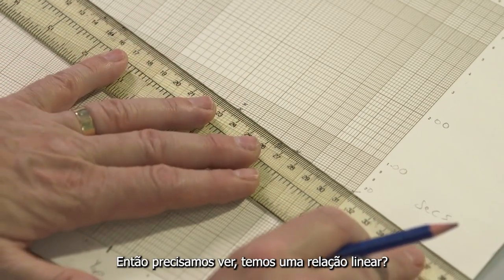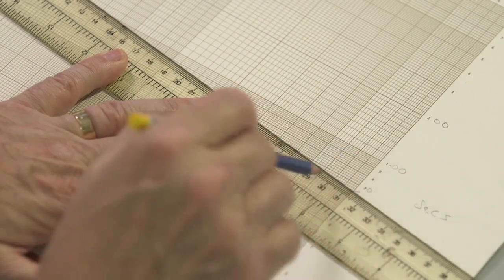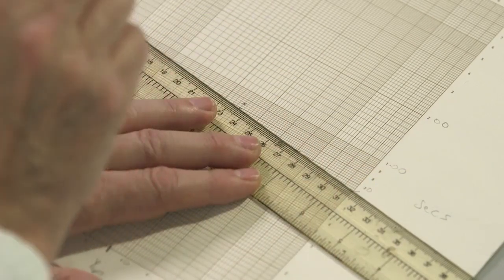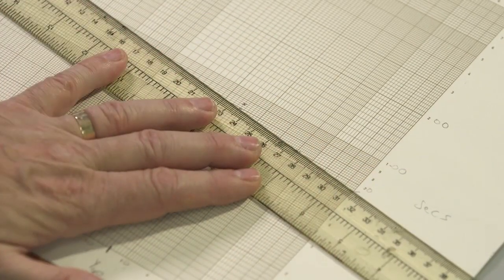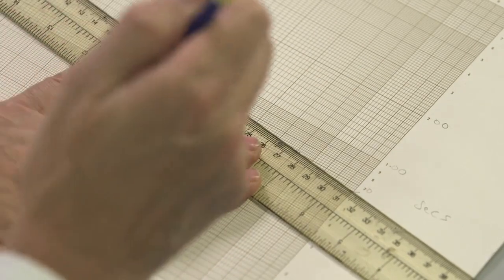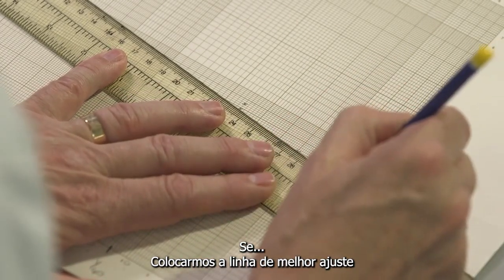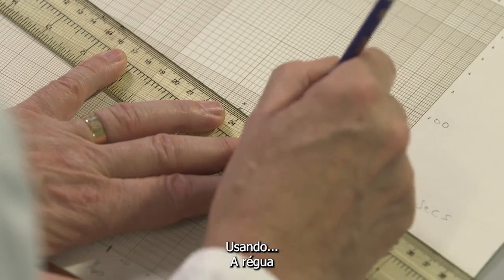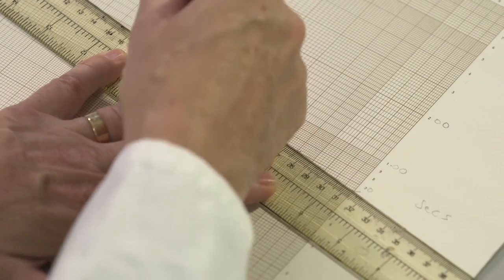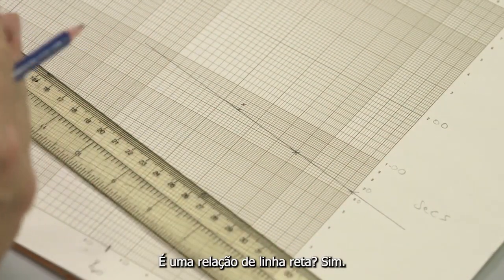So we need to see, do we have a straight line relationship? And it's immediately apparent that there is a very good straight line relationship, at least if we use the clotting time of 78.5 and ignore the 85. It seems as though this is an outlier. If we put the line of best fit using the ruler through those points, is it a straight line relationship?